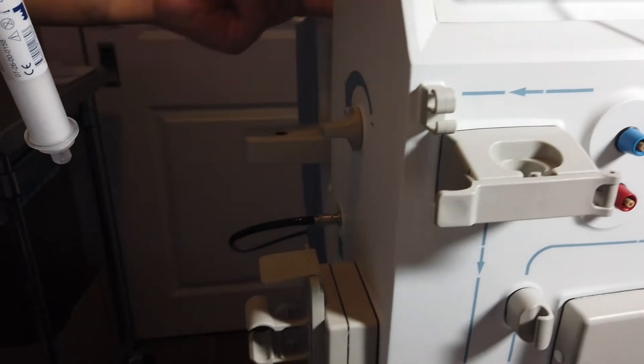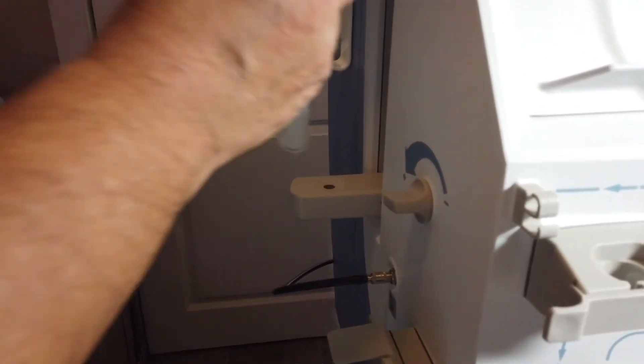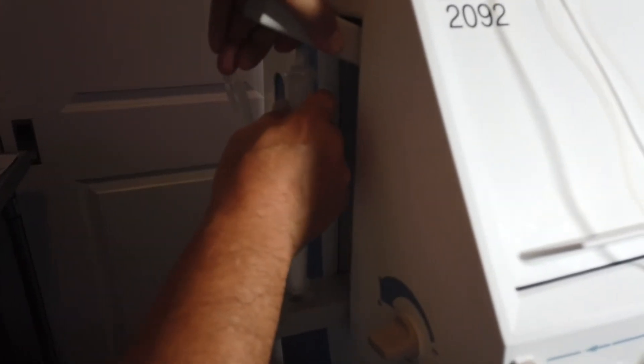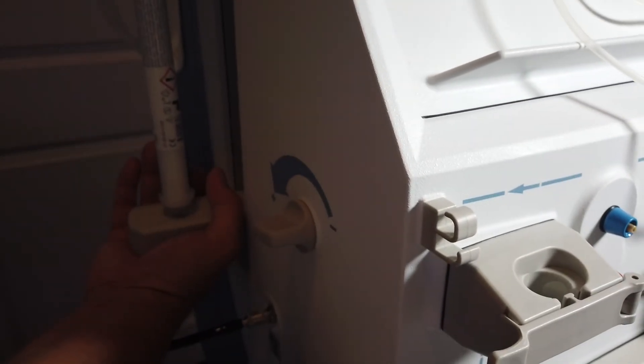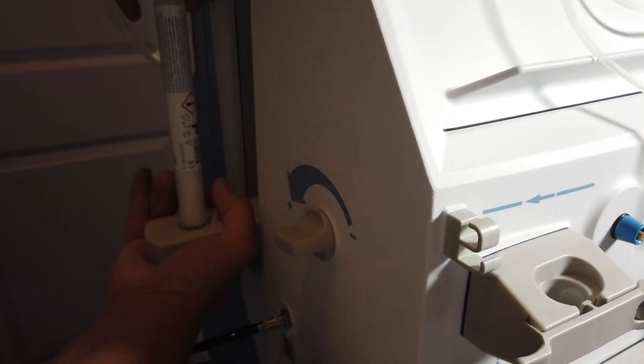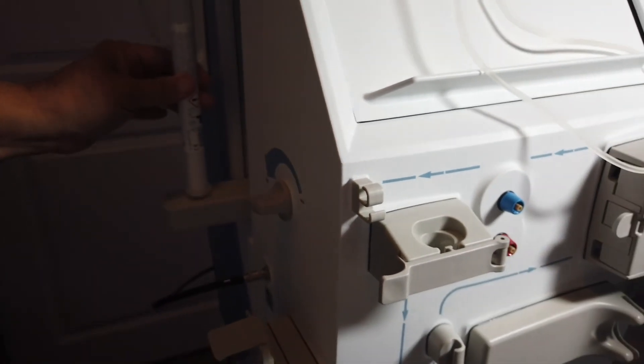Open up the unit here. I start with the bottom first. Just line up the bottom, pull on top, pull the top lever, then line the hole up, hold the bottom of it to keep it so I can push down on it. Once I push down, it's now locked and ready to go.